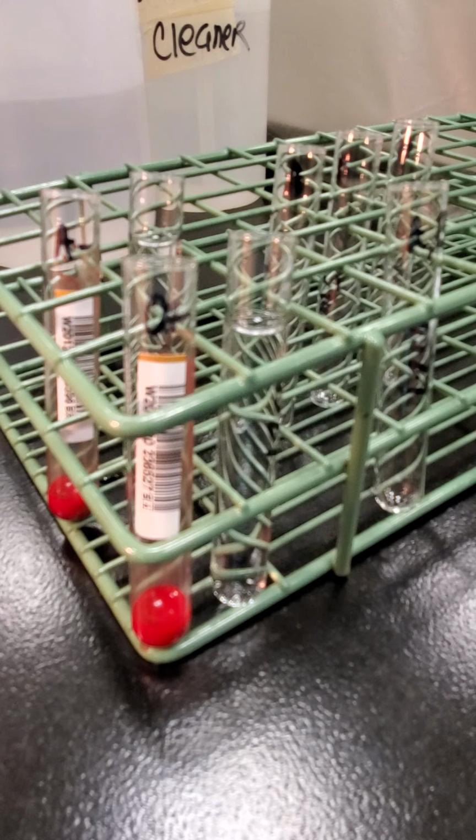On your sheet, the directions say if a unit is group O, so we're going to know the unit type, what it should be, based on how the unit is labeled. So we are just doing a type once the unit has been received into our inventory, just to confirm that, because we don't want to transfuse the wrong blood type. That is a big no-no. So this is just confirming that that labeling is correct from the supplier.